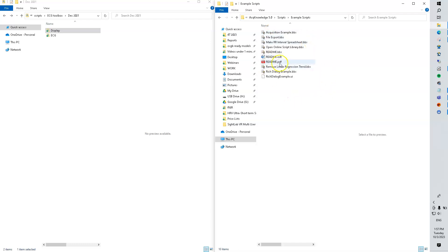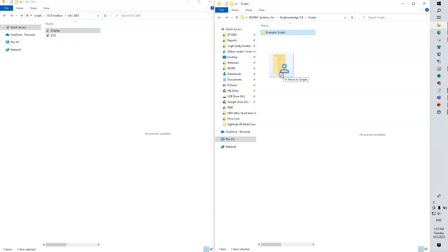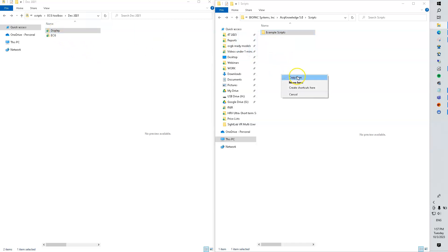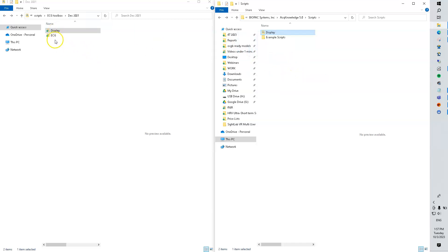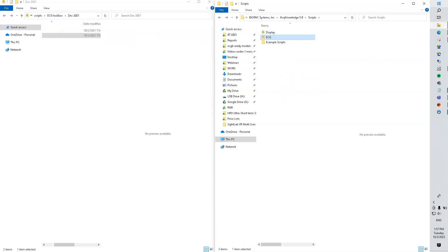Here we already have some sample scripts. We'll go ahead and copy this one over here, and copy this one over here.